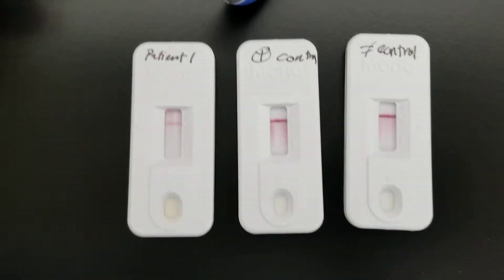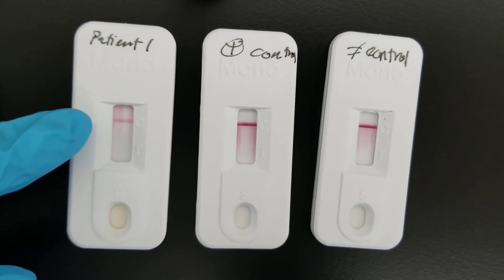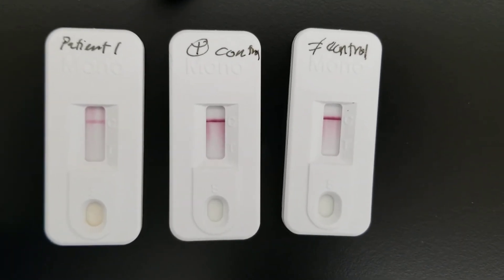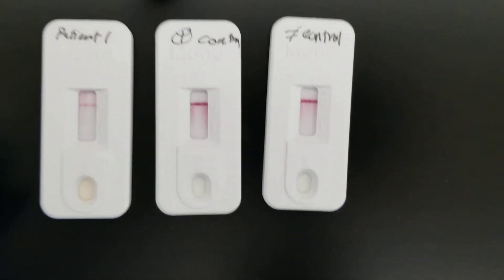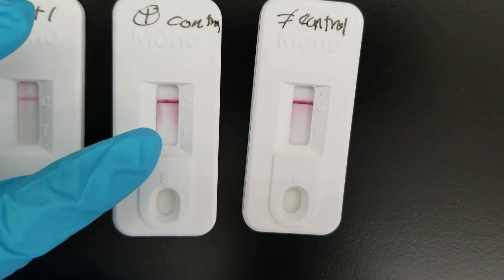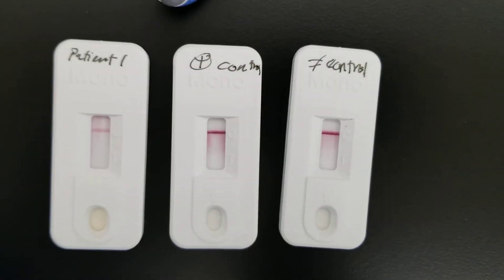We are nearing the end of the incubation period, and you can see that these test results are exactly what we were expecting. The patient is negative — there's no test line, meaning that there weren't any antibodies detected. The control line means that the cartridge is working. For the positive control, you can start seeing that faint line at the test line, meaning that is showing a positive test result. The negative control has no line in the test line, so that is showing absolutely perfectly.